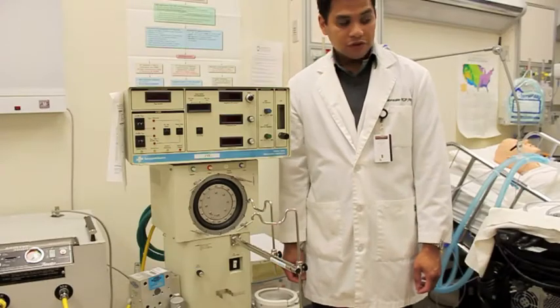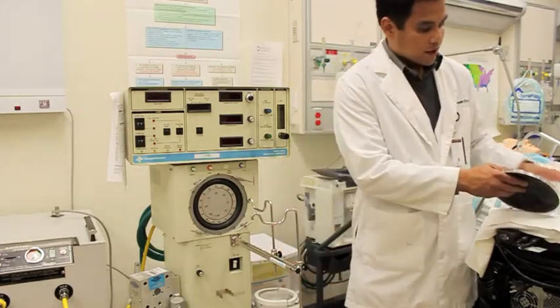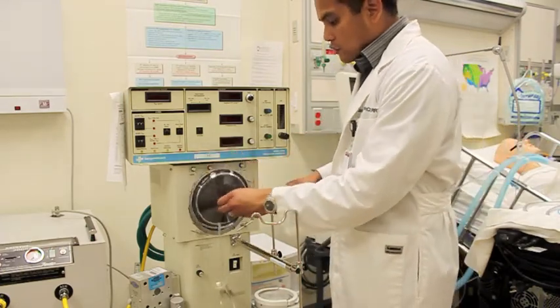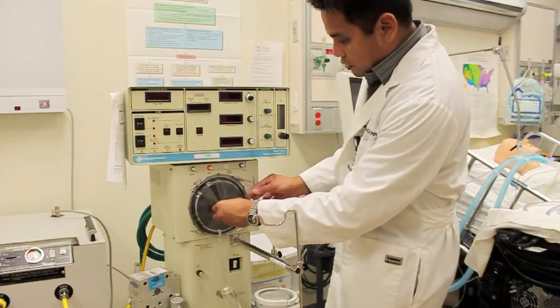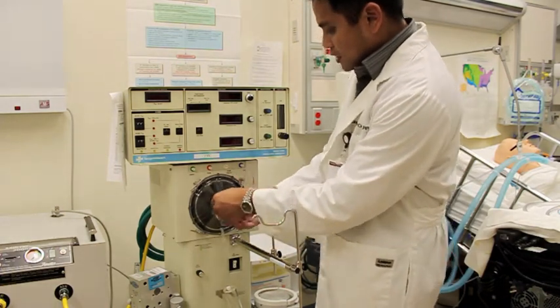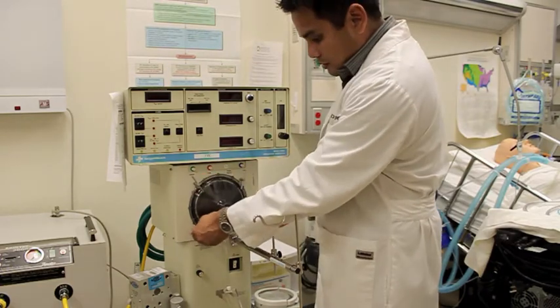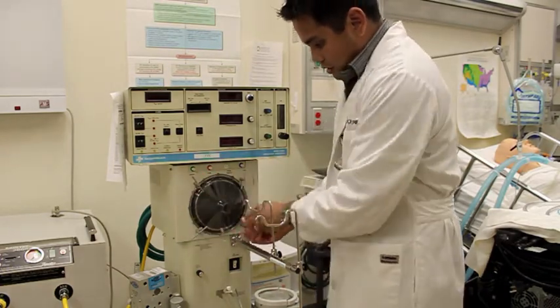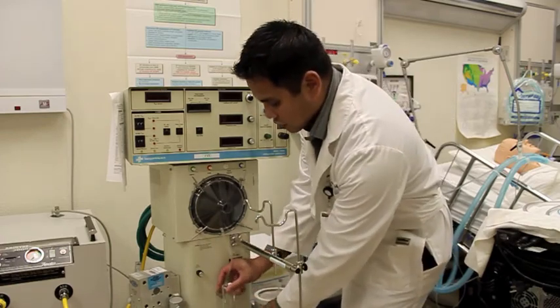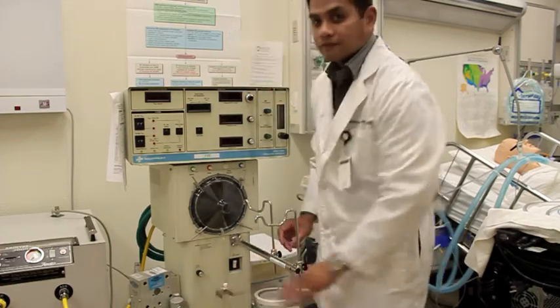Now we're going to connect our circuit. The first thing we want to connect is the diaphragm, and we want to make sure we put the diaphragm right in front of the drum. Okay, so here's the drum right here and the diaphragm, and there are 4 locks here, so I basically want to make sure that this is all locked in so that it doesn't come out. And then our cylinder here that basically catches the condensation, I'm going to put right here.